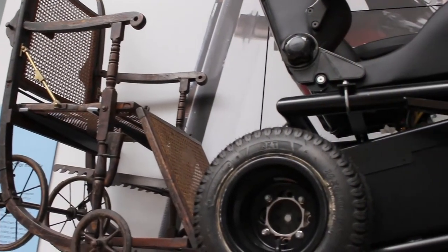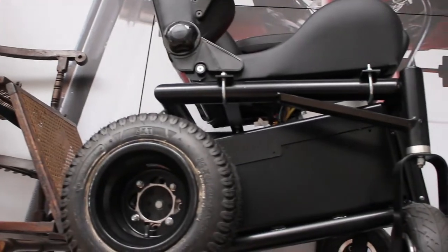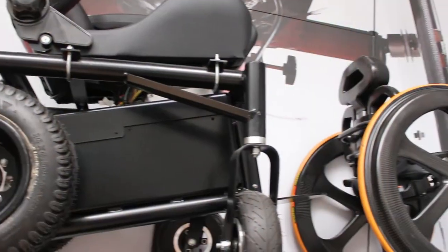We try to track how wheelchairs have developed so that people are more mobile on their own. The Freedom One is a particular development by an engineer who made a wheelchair for himself because he didn't find anything similar on the market. The carbon black wheelchair is made of particularly lightweight material, which in terms of the development of wheelchairs was revolutionary.